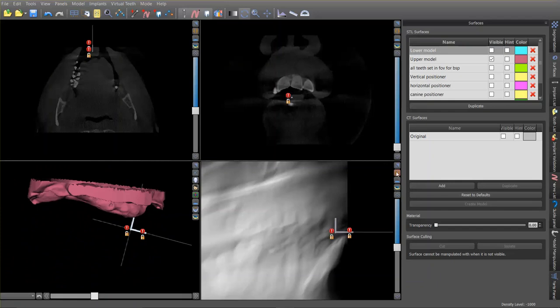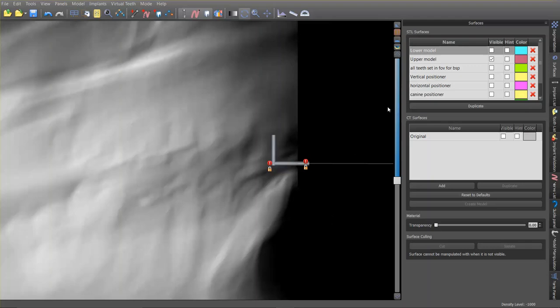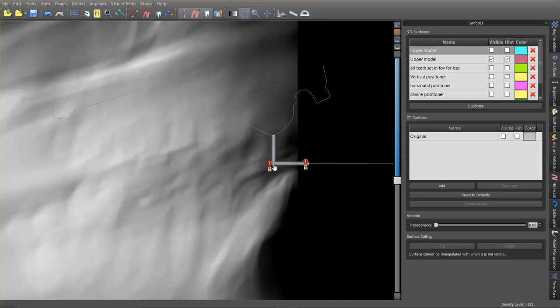I did this based on anatomic averages. If you look at the outline of the maxillary cast, we know from the literature that the anterior teeth's incisal edge is going to be about 8 millimeters anterior to the incisive papilla, and on average 6.7 millimeters vertically down from the papilla. So this is a dummy implant — 6.7 millimeters long — and this is an 8-millimeter dummy implant giving us that measurement. Now we've defined where the incisors should in theory go.